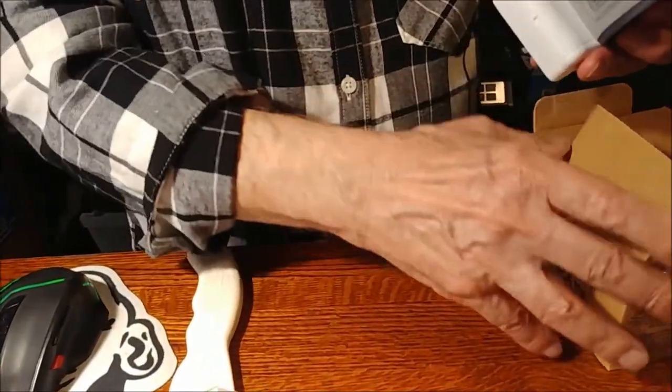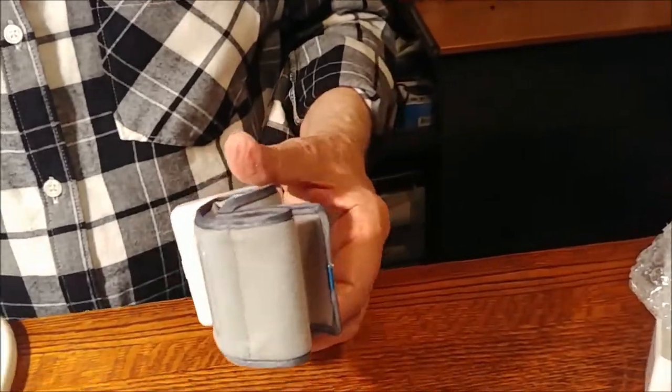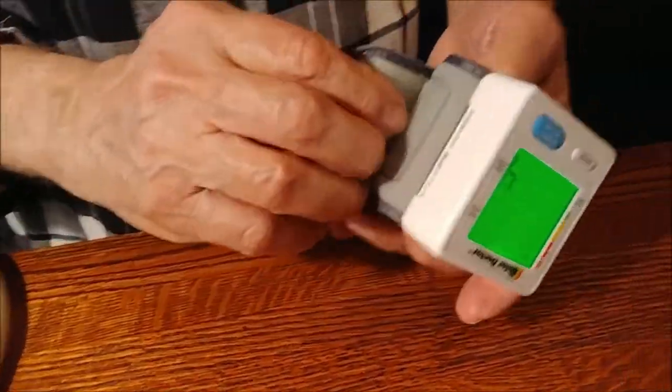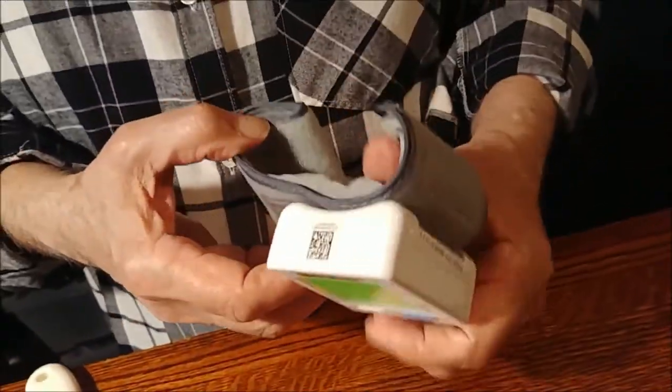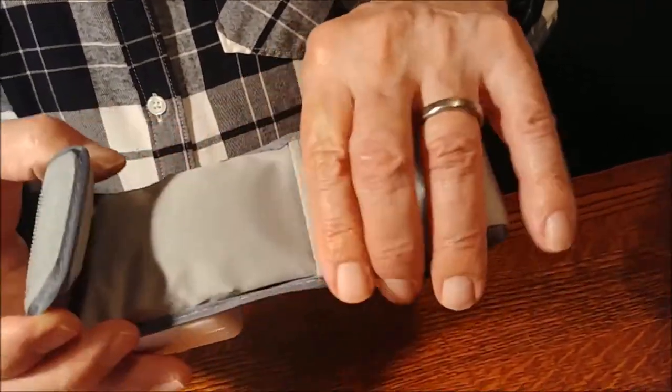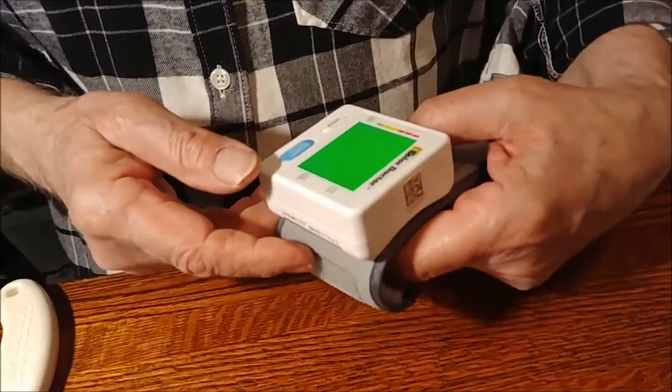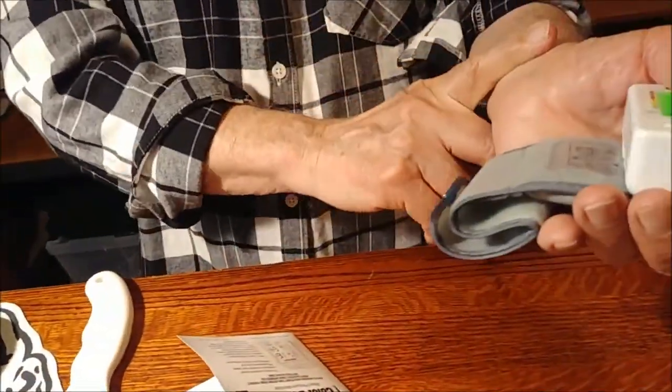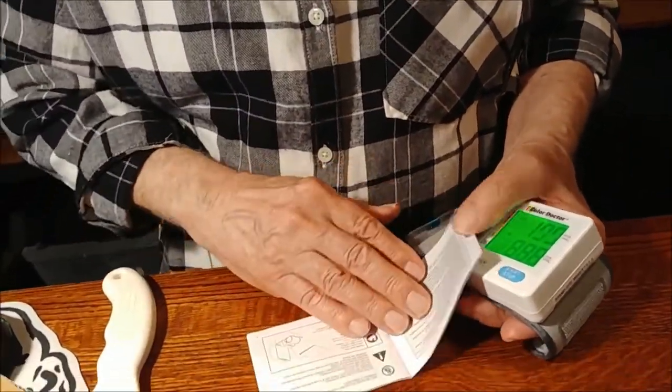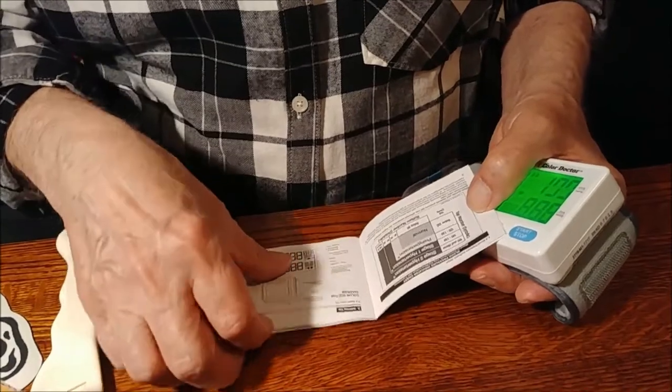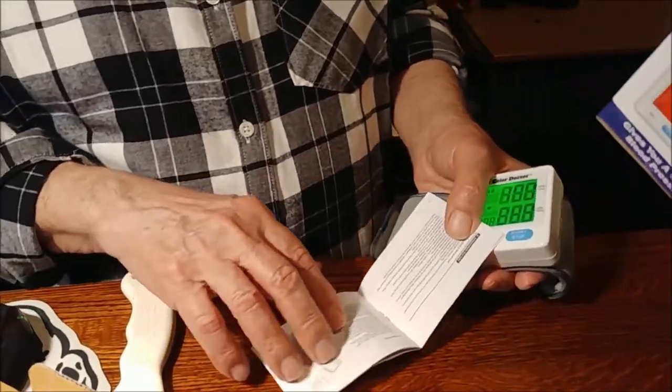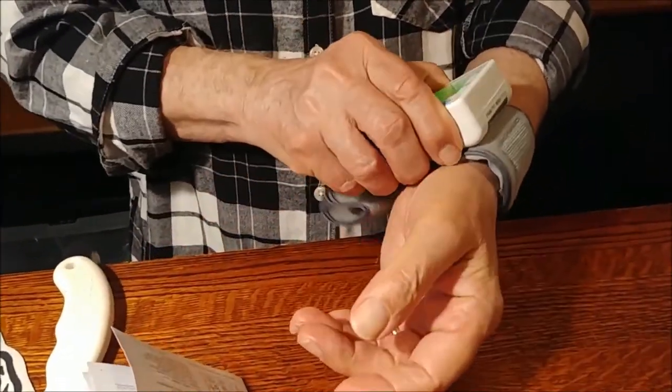Ooh. You know, we don't even have to put it on. Error, error, error. That is ridiculous. What do we do here? You have to put it on your upper arm. Upper arm? No, I think it goes on the wrist, doesn't it? Oh, okay. This does picture. Let's see if there's a picture of it. Yes. Right here. On the bottom of the wrist.